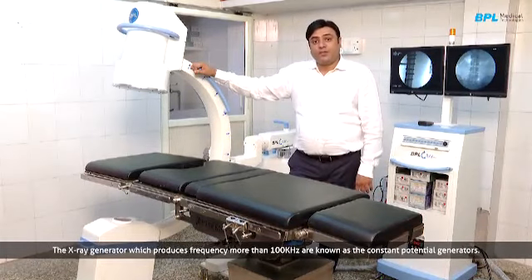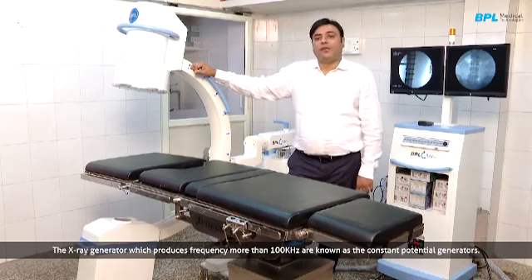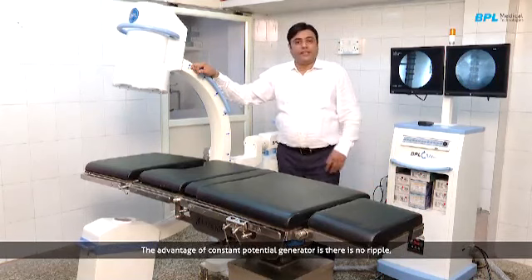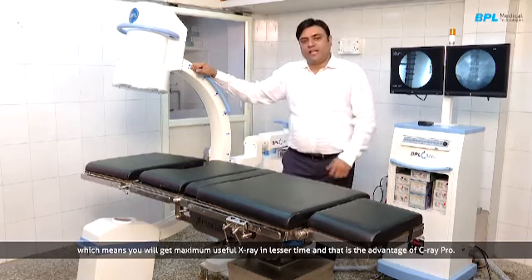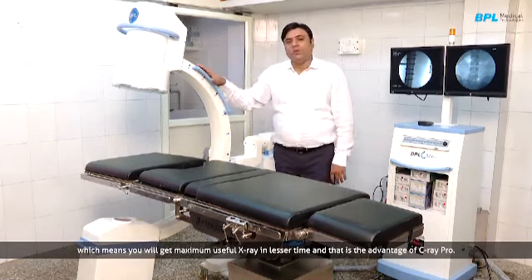The X-ray generator, which produces frequency more than 100 kilohertz, is known as a constant potential generator. The advantage of a constant potential generator is there is no ripple. It means that you will get maximum useful X-ray in lesser time, and that is the advantage here with C-Ray Pro.